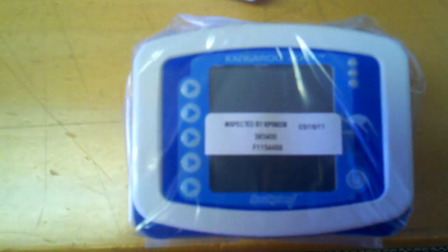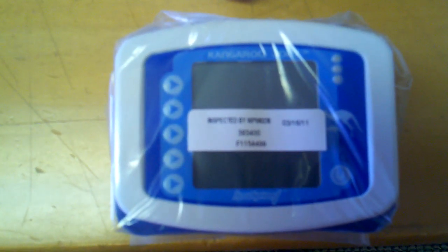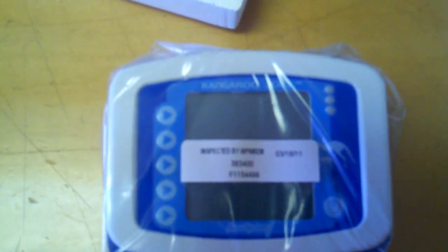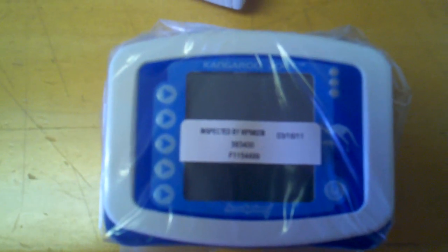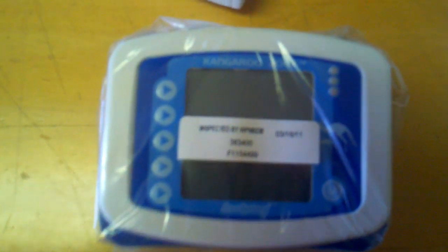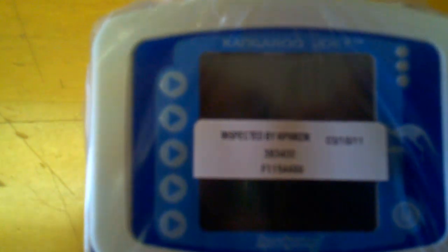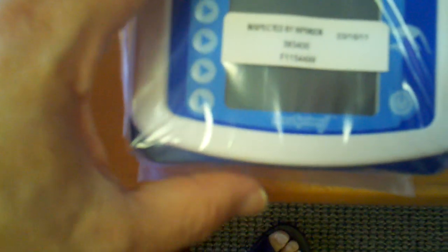And what's nice too is this is pretty rare. But you can see, and I'm going to focus in on this, is it was inspected. So they actually test it, which means we don't have to test these when they come in.